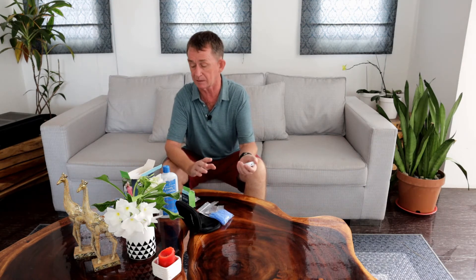Before I do a test, I want to say: if you suspect you have diabetes or some other problem, you should consult a physician first. Many people with diabetes use these on the instructions of their doctors. They are not recommended for pregnant women or infants. There is also a list of error codes and a quick reference manual — for example, error one means a damaged or wrong test strip, error four means not enough blood.